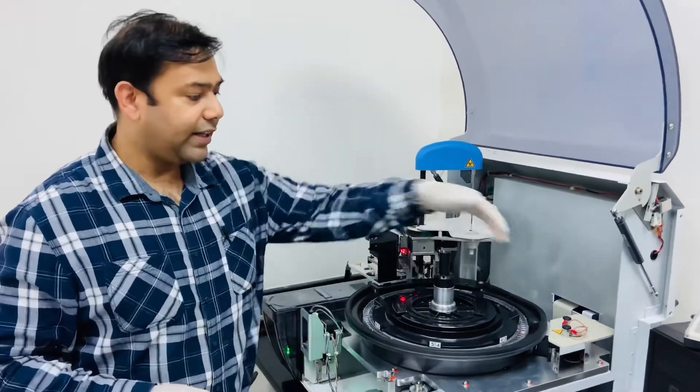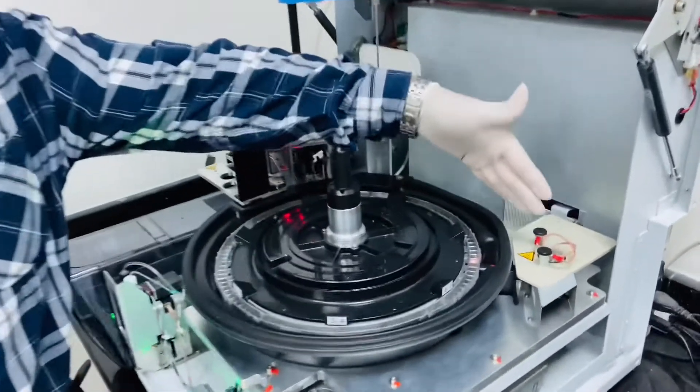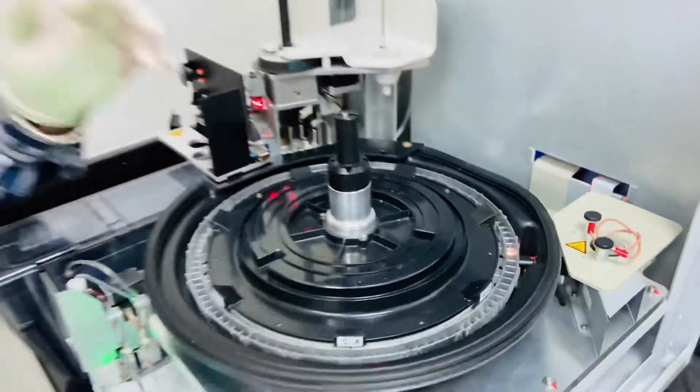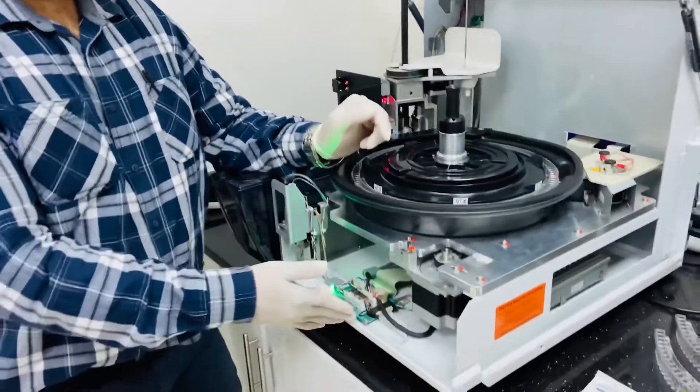And here this is the lamp, halogen lamp 12 volts.